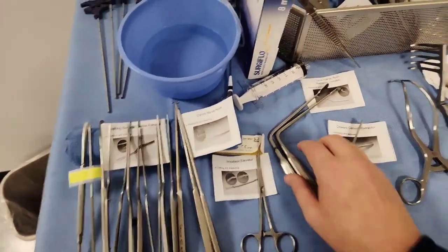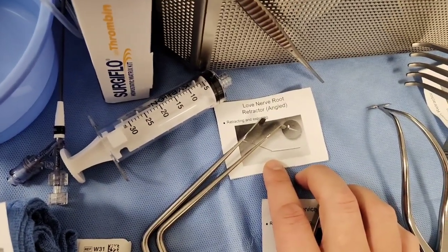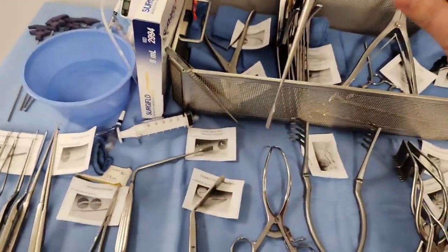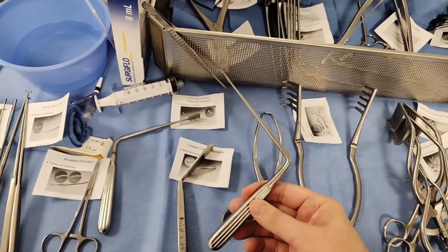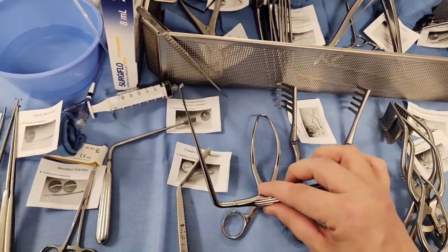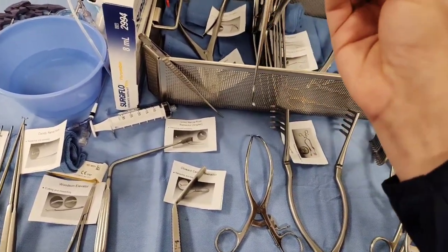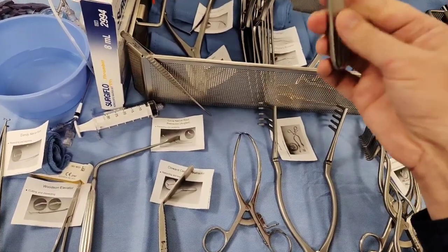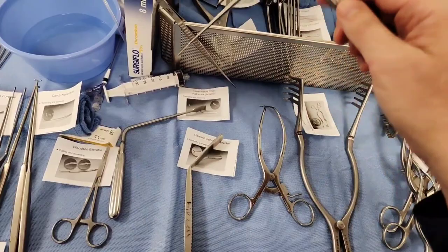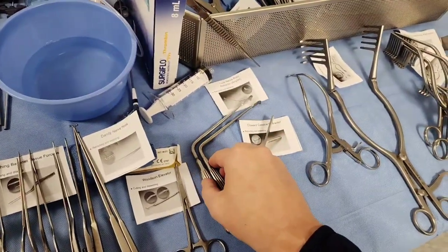This is called a Love nerve root retractor. Why do we need this retraction device? They come angled or at more of a 90 degrees. We isolate the nerves that run bilateral on the spinal cord. If you're in the back, you can see it comes at an angle — we isolate that nerve, protect it as we're working. This retracting device really is just to isolate the nerve, retract back on it, and make sure it's protected.